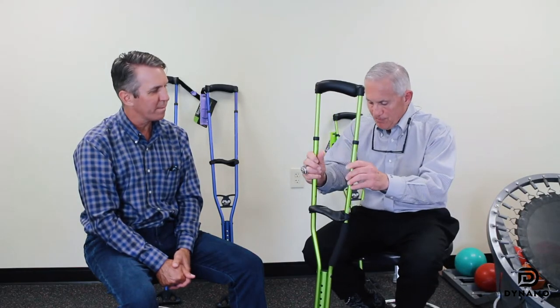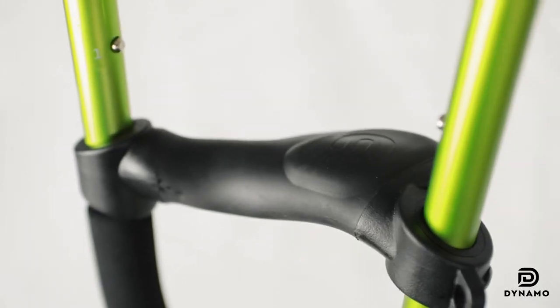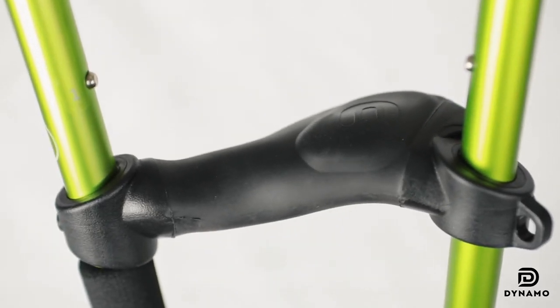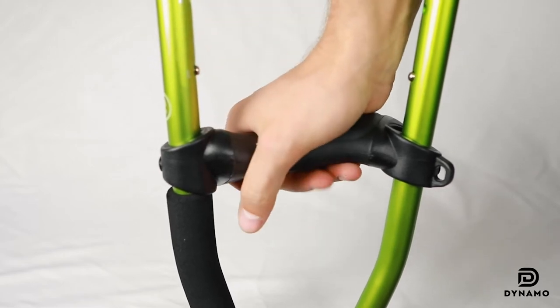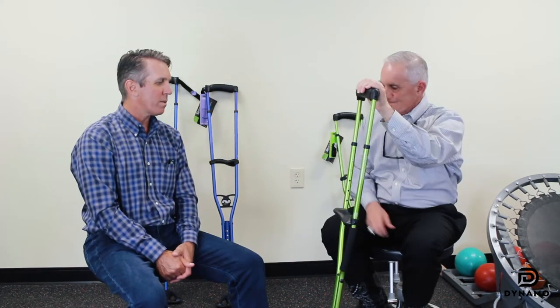The foot's an excellent design. The hand plate, ergonomically, allows a more spread area of surface contact. It doesn't matter if you have a small hand or a large hand — you're able to really get the contact you need, and it's less likely to put too much pressure on the thenar and hypothenar position, so that you can get more surface contact with the hand.